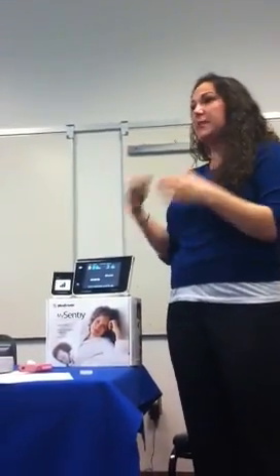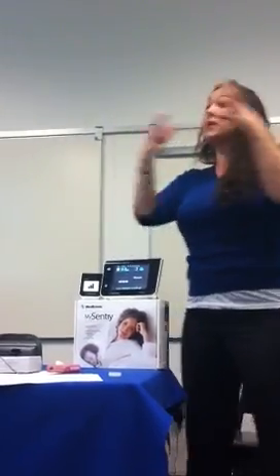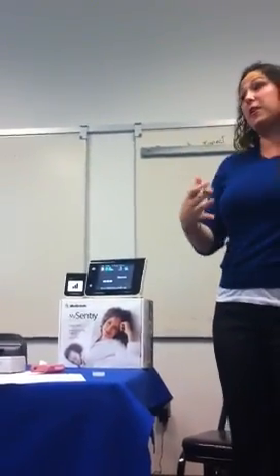Yes. Is it currently capable of listening to 2 different people with 2 different sensors? I thought currently it was one. It's a one-to-one, so it's one pump to one monitor. What you can do is say you only have one mySentry and you have 2 people in your household that have diabetes. You can say, maybe I'll monitor this person for 1 day or a couple days, and then you can switch it and link it to that other pump and then monitor another person for a couple days. But it's only one-to-one at one time.